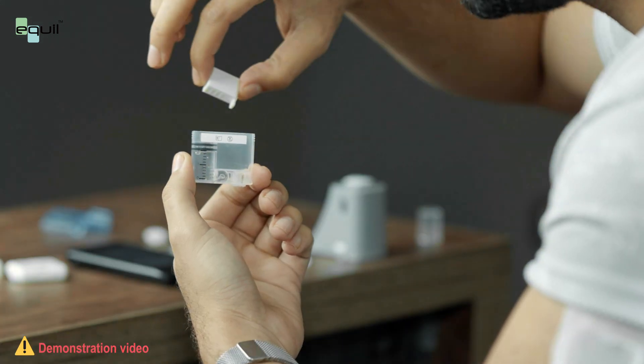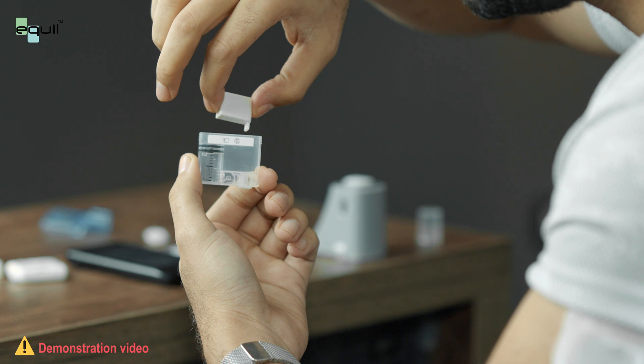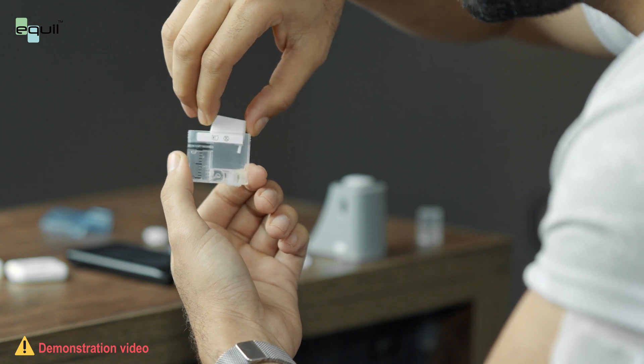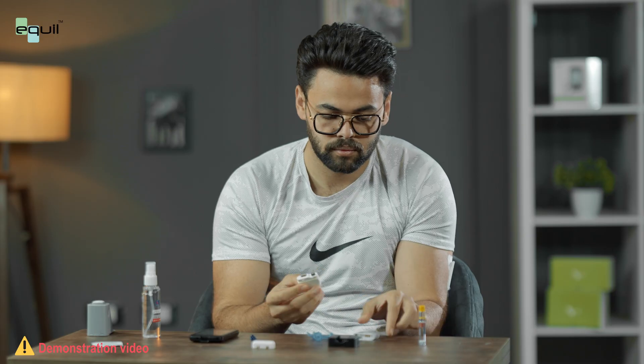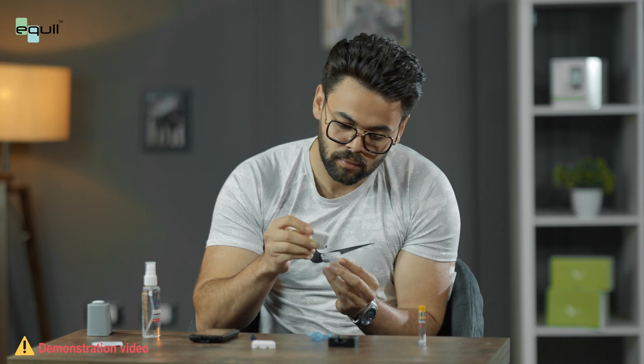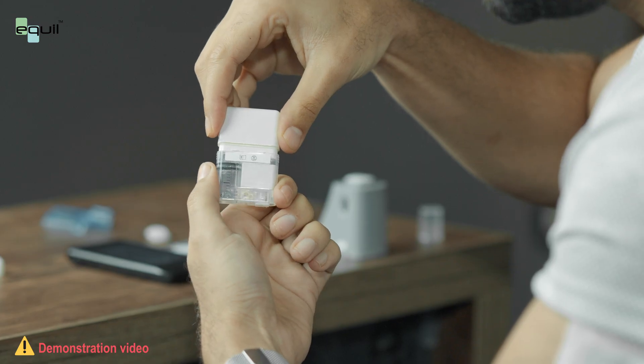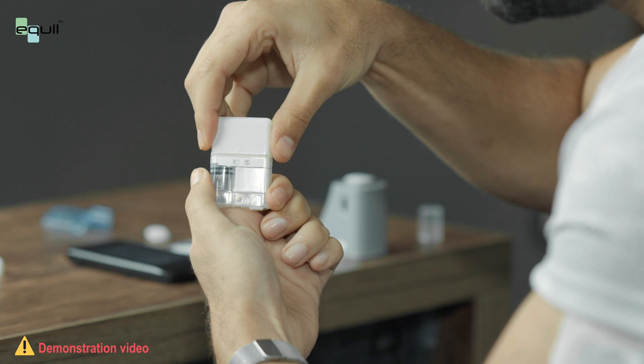Before we install the battery, this another caution, we should ensure that it is fully charged. Now assemble the pump and the reservoir in the correct position. Then press both together until you hear a tick.